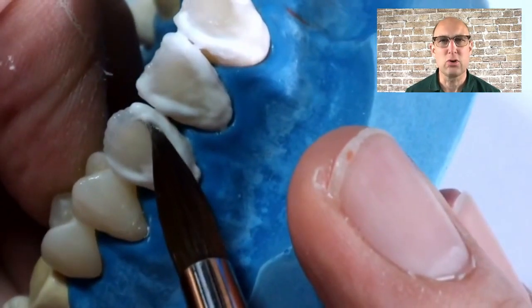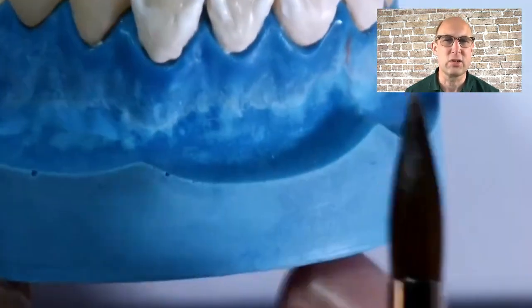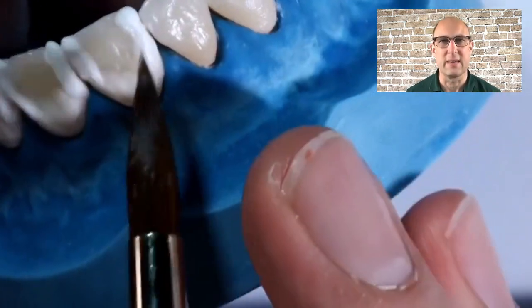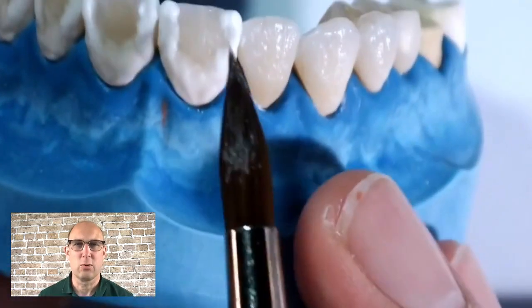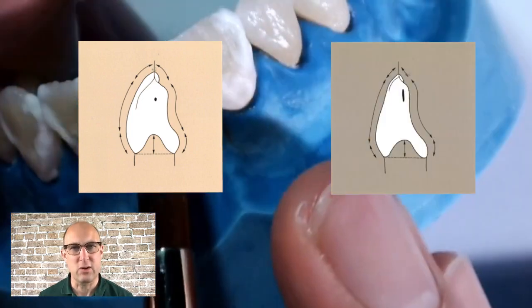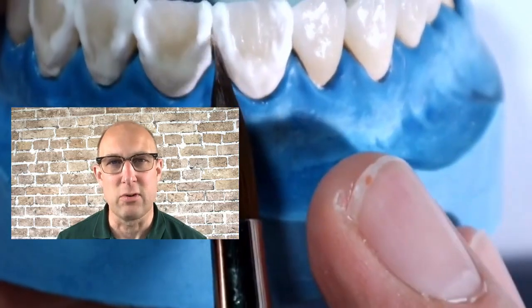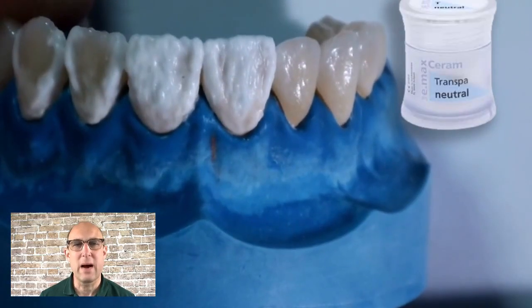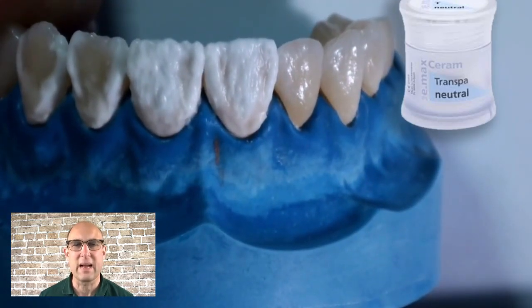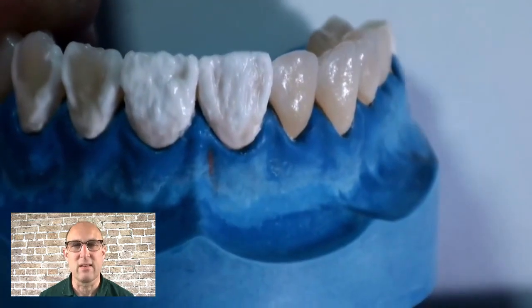I use my brush to shape the outer contour of the teeth and I don't continue with the layering until the shape is correct in width, height, and all dimensions like golden proportions are applied. Also keep in mind which tooth shape you're trying to achieve — if you're going for an oval tooth, don't make it flat and straight like a square tooth. I'll get more into tooth shapes in the contouring videos. Then I fill up the remaining part with translucent incisal and neutrals, so when you have a dentin cutback and a facial cutback next to each other you can achieve the same value and translucency level very easily.